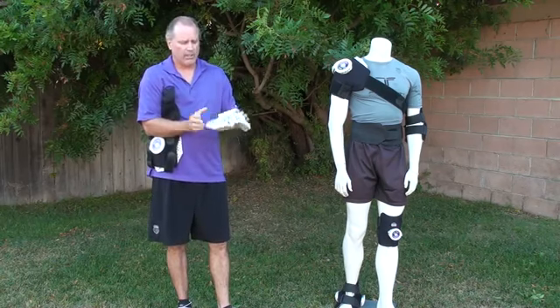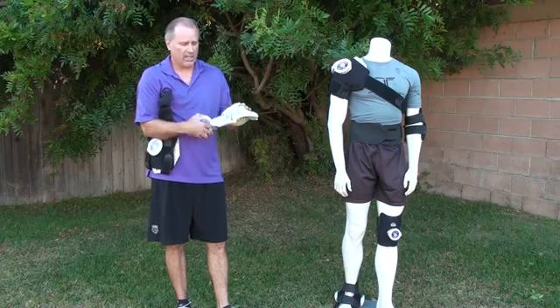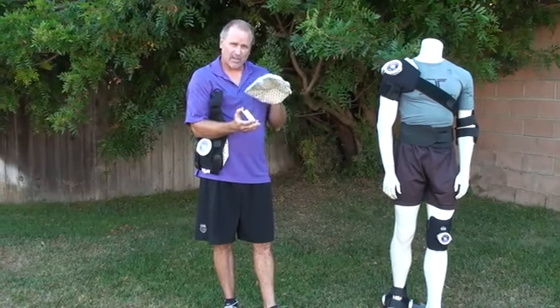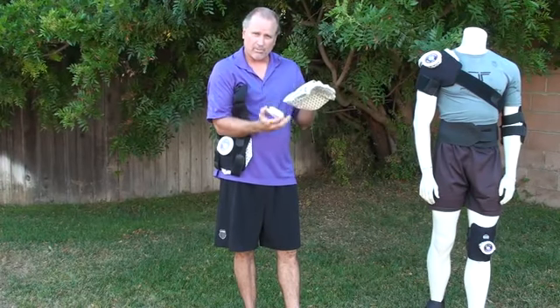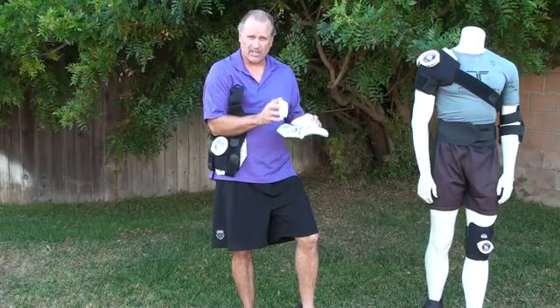Take each bag out — it has a twist cap. The bag is a cotton polyester bag, no latex, and it comes with a rubberized lining so it insulates the coolness longer. What we do is we put about a half of this bag of ice, just enough to cover the bottom layer of the bag, and once we do that the bag will expand as we put the ice in.